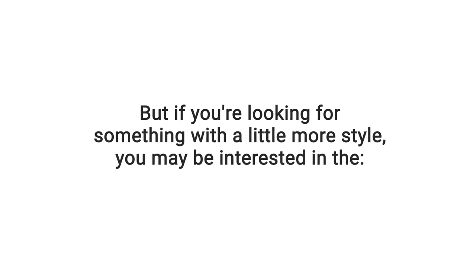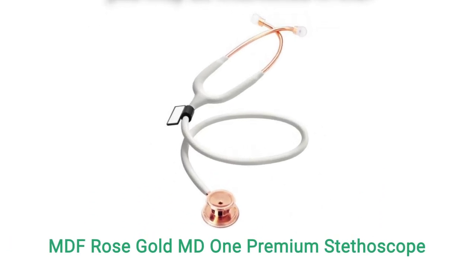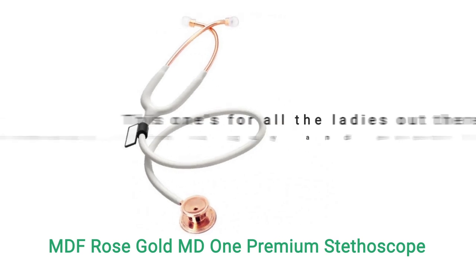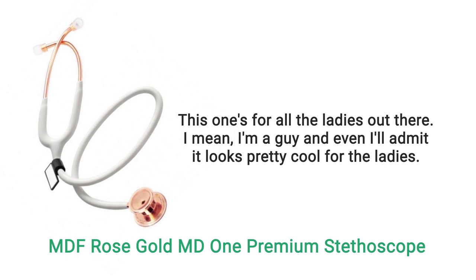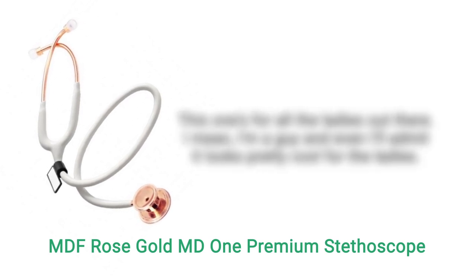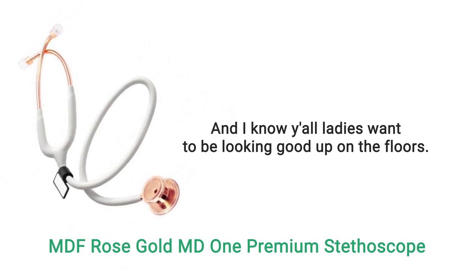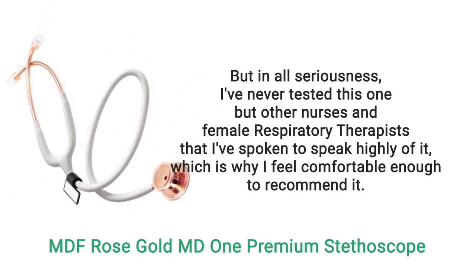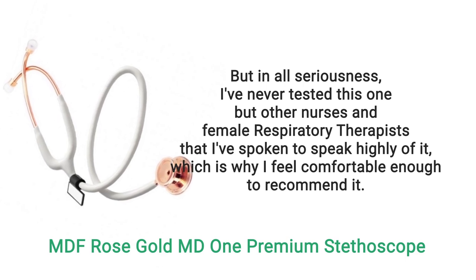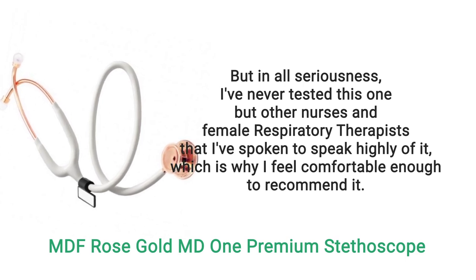If you're looking for something with a little more style, you may be interested in the MDF Rose Gold MD1 Premium Stethoscope. Other nurses and female respiratory therapists I've spoken with have nothing but good things to say — they speak very highly of it — and that is why I feel comfortable enough to recommend it.